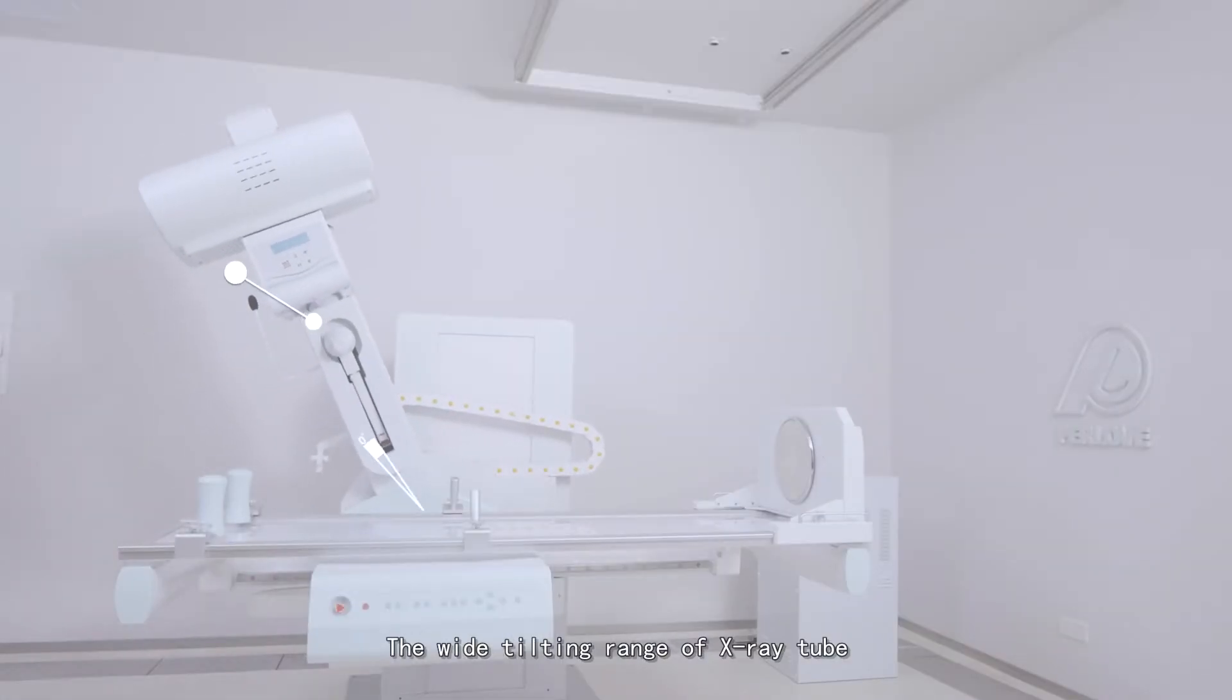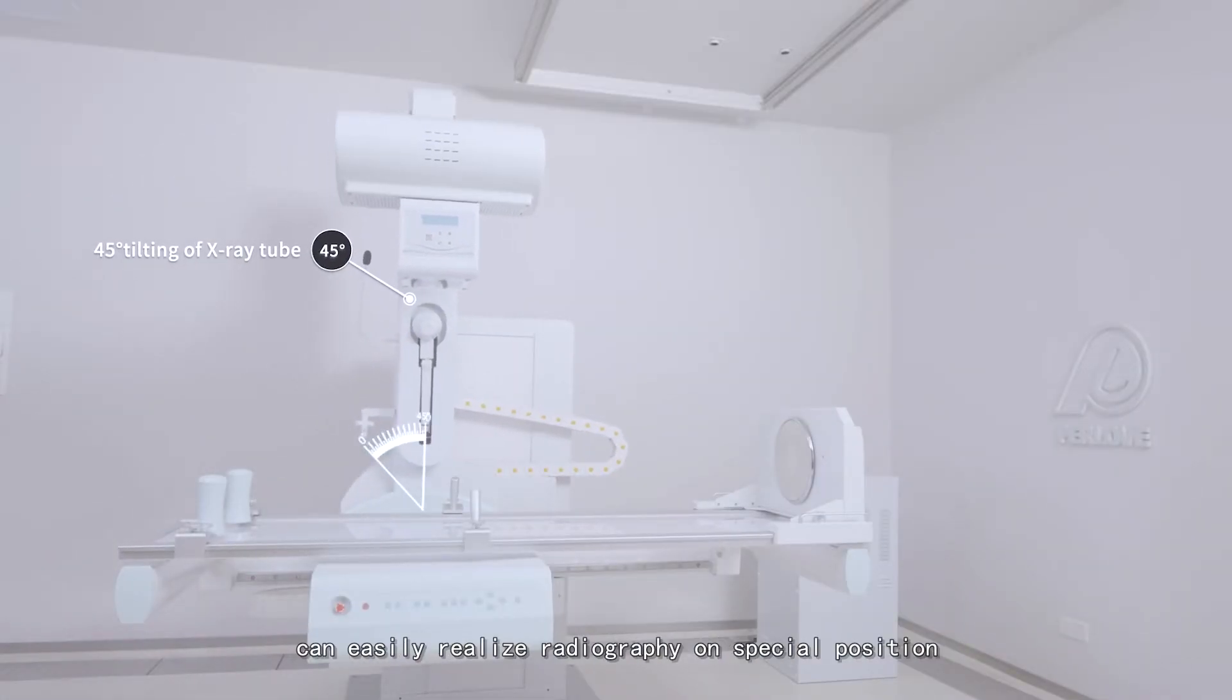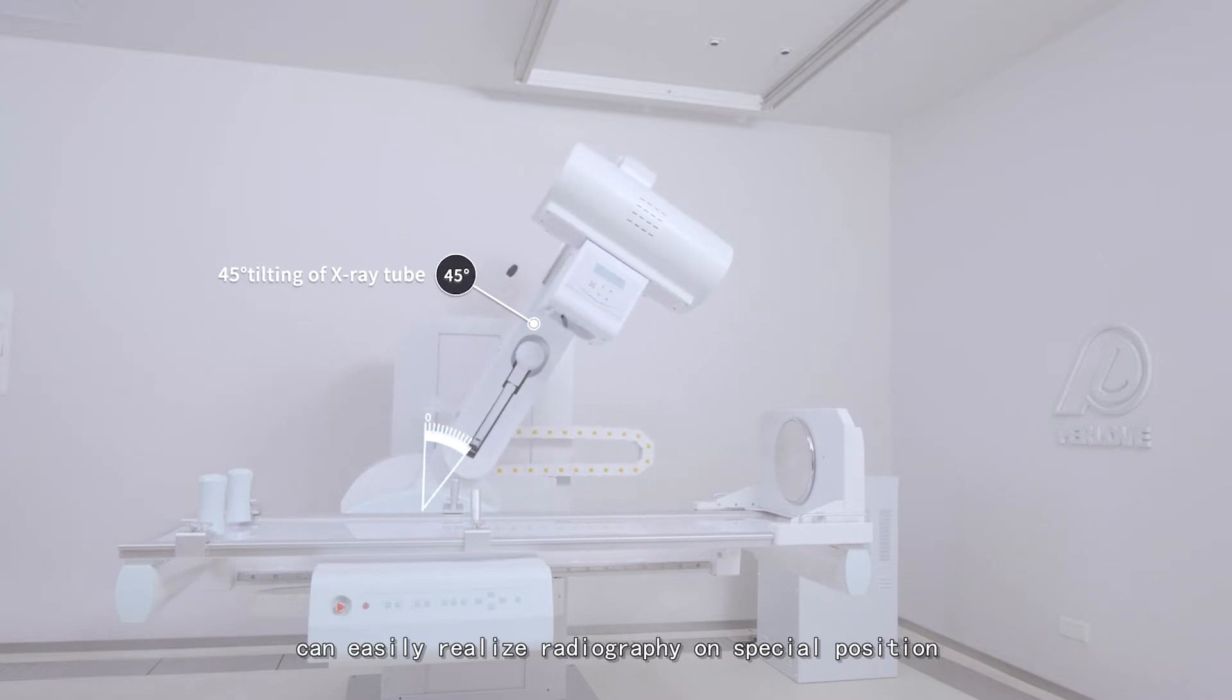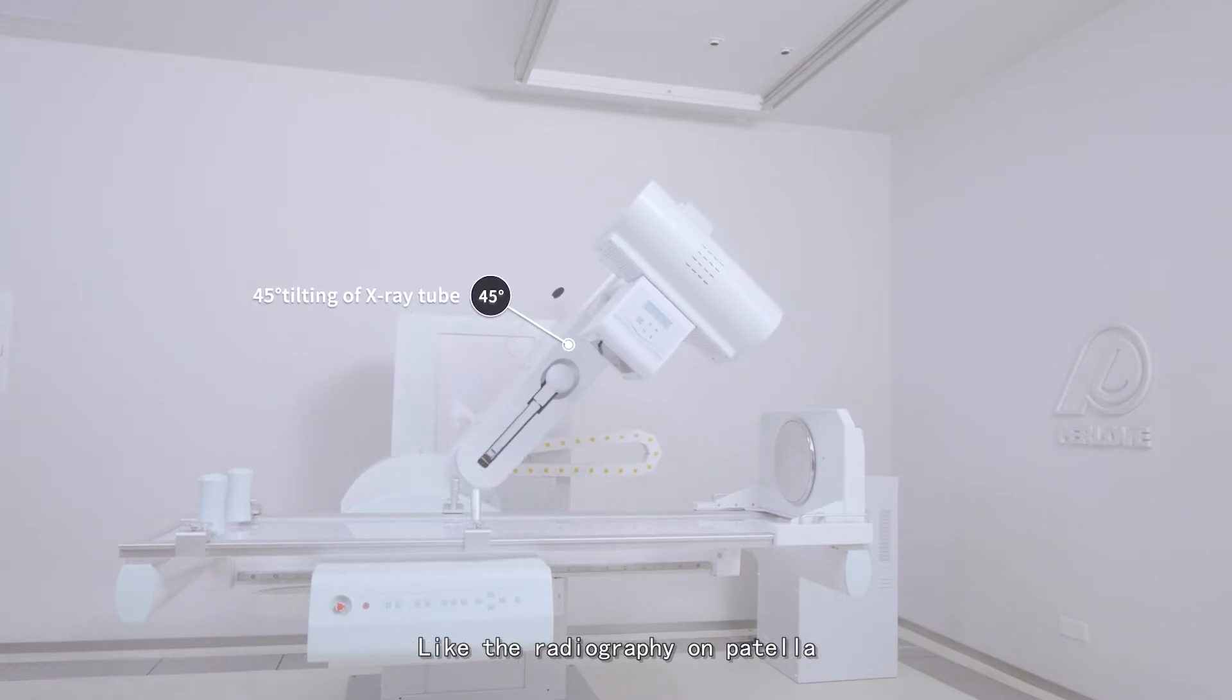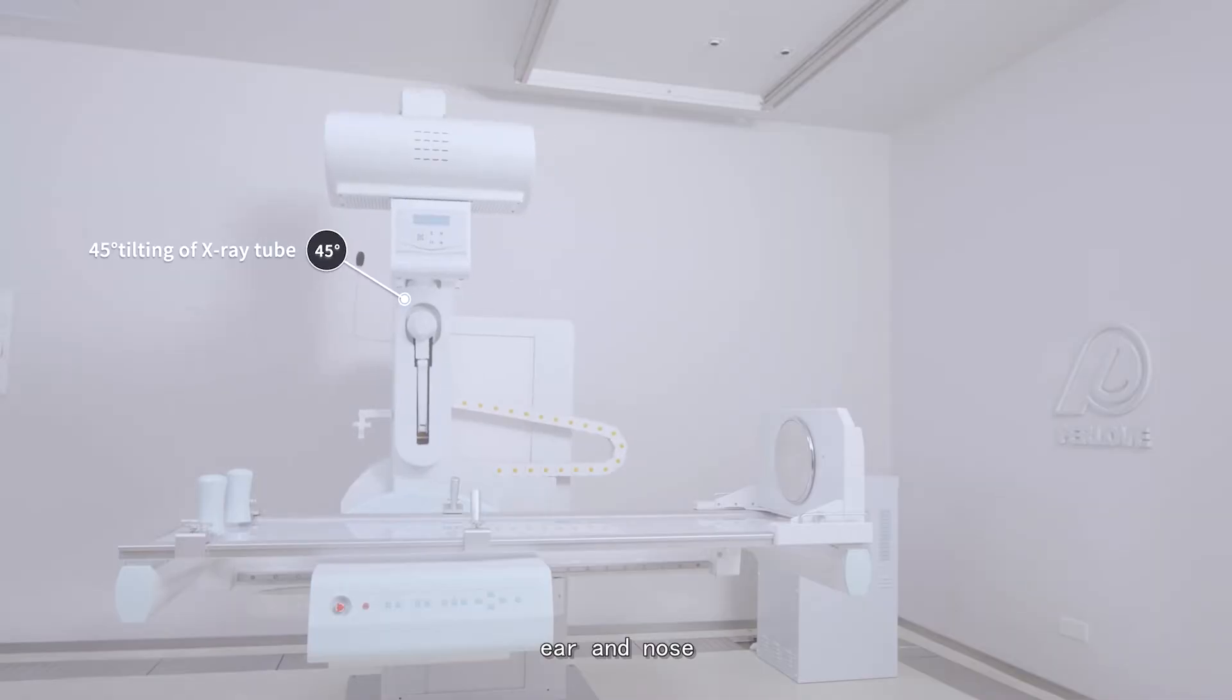The wide tilting range of the X-ray tube easily enables radiography in special positions, such as patella, heel bone, ear, and nose.